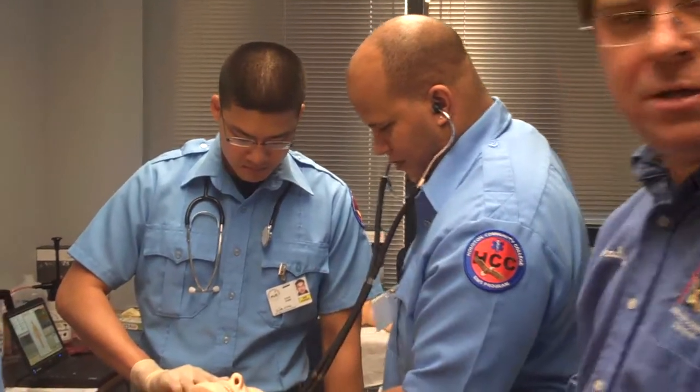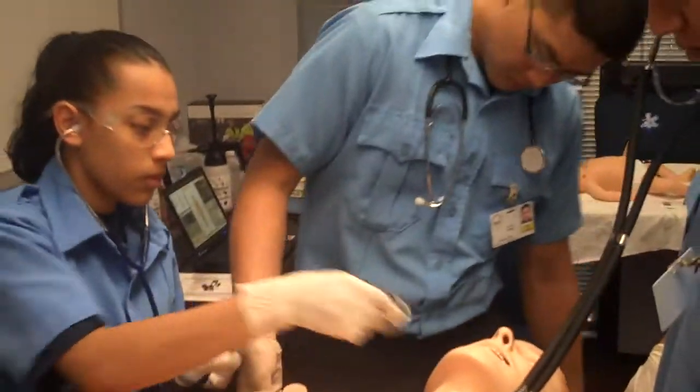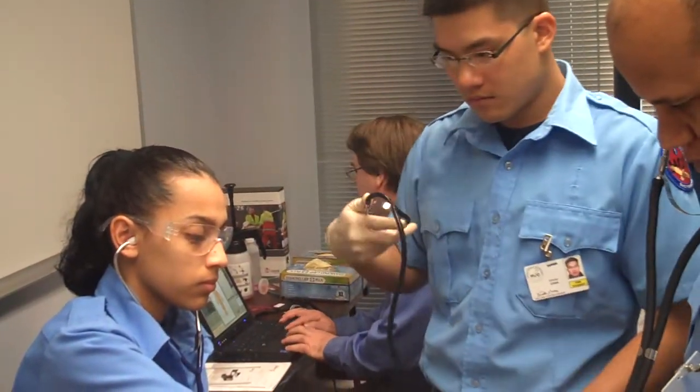We can make him sweat — he can be diaphoretic. He can be cyanotic as well, and we can change it. He'll turn around his lips — the color — you get a little discoloration here.